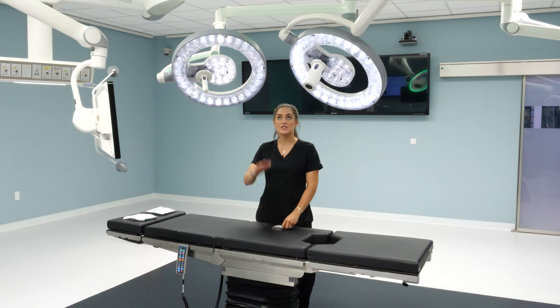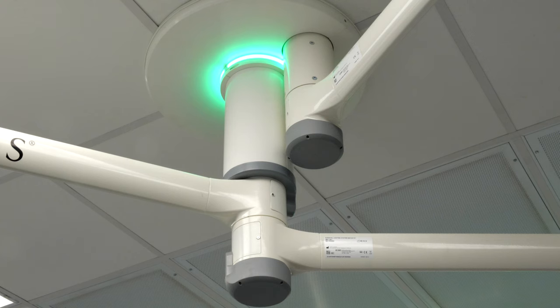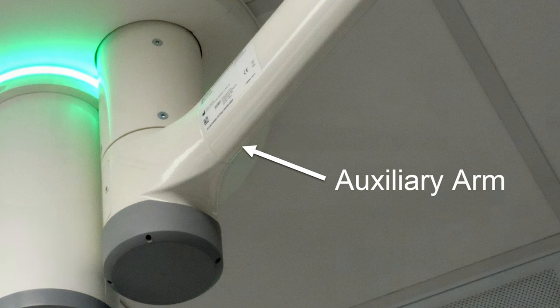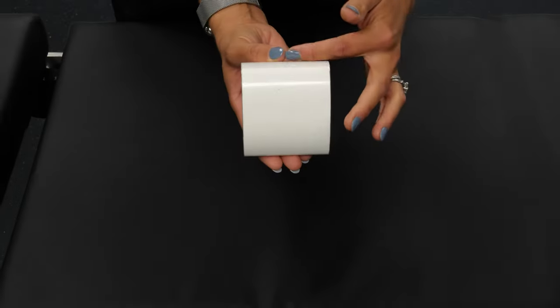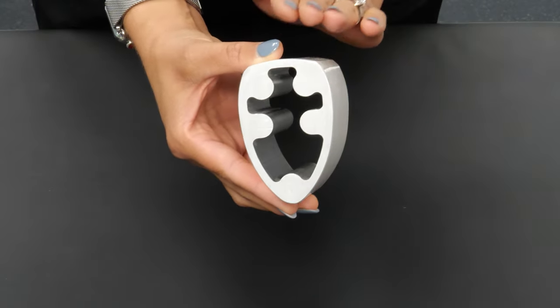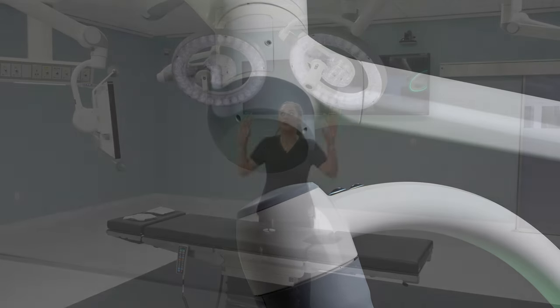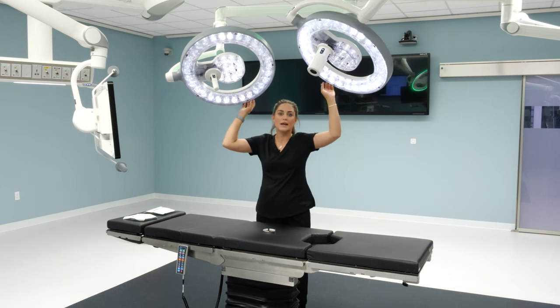To review the suspension system, we're going to start from the top and come down. At the top there's an optional ambient light ring around the main spindle. There's also an optional auxiliary arm — on the A-series lighting system you can add up to two of those arms at any time post sale. The shape of the arms is significantly different from any other light on the market. It's an airfoil shape similar to an airplane wing to help minimize dust and help with air turbulence in the room. You'll also notice all of the gray knuckle covers on each point of the system — that's done on purpose as a collision point, kind of like a bumper to help protect. So as the light heads touch together, there are no plastic components to break.